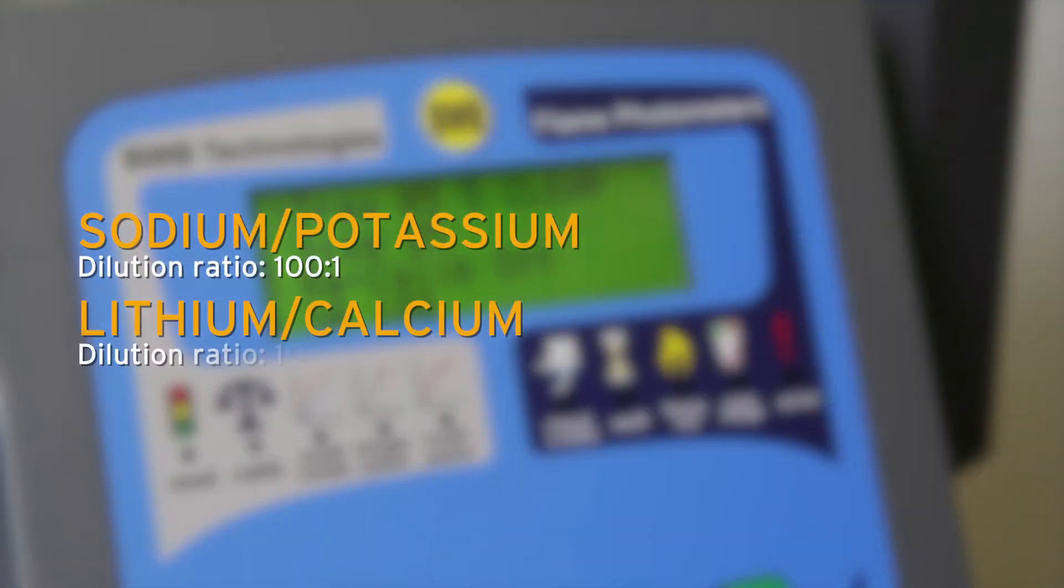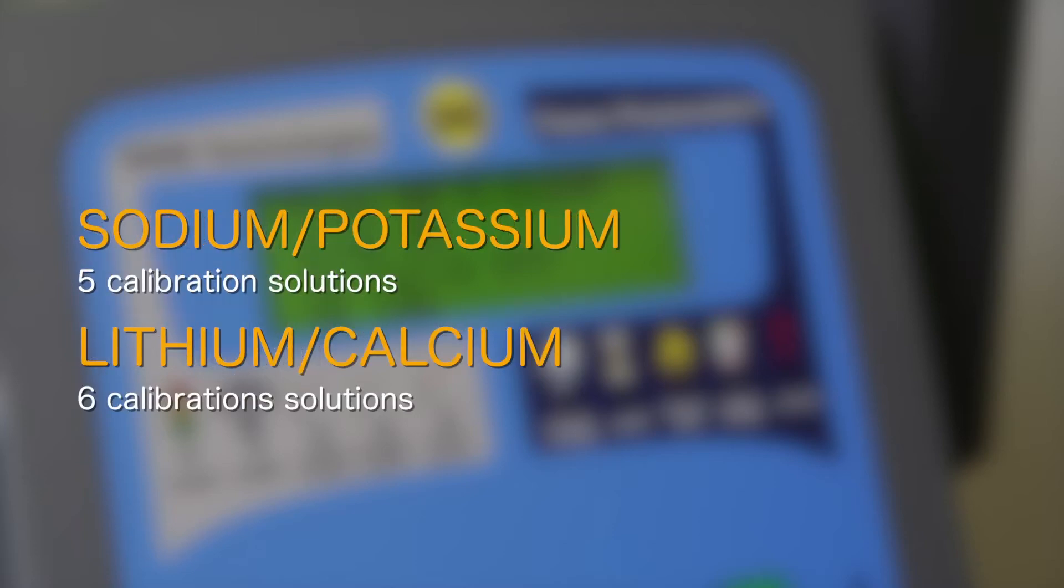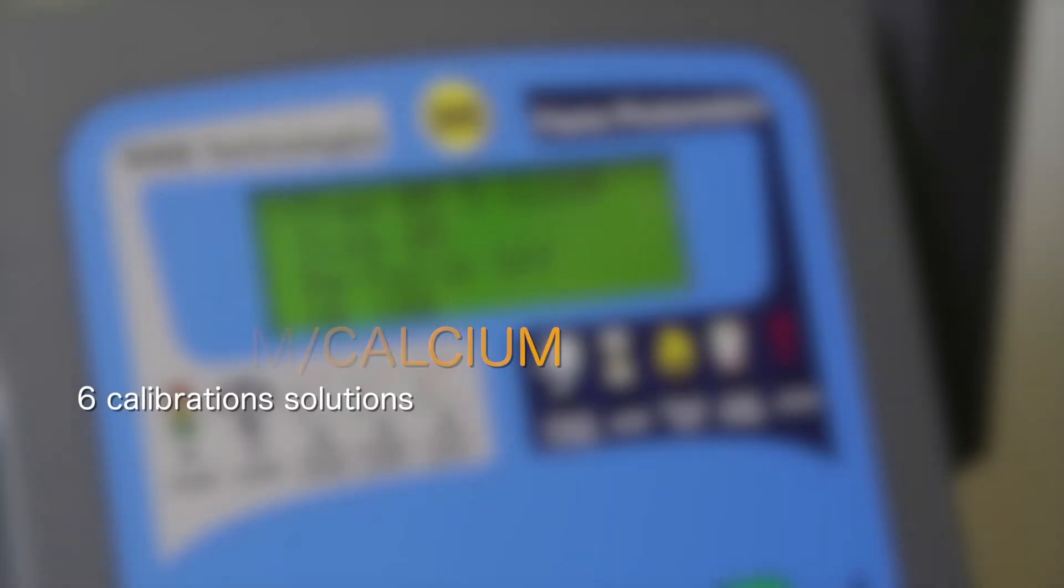For each type of test, the same solutions are used for sodium potassium and for lithium calcium, but with different dilutions. For a lithium calcium calibration, one further calibration solution is provided.